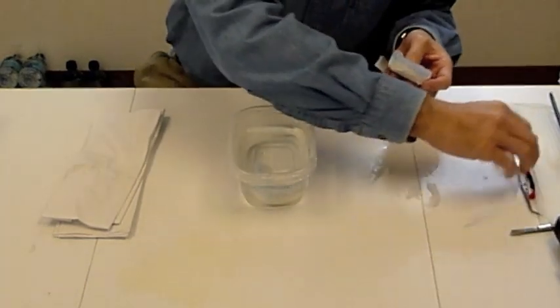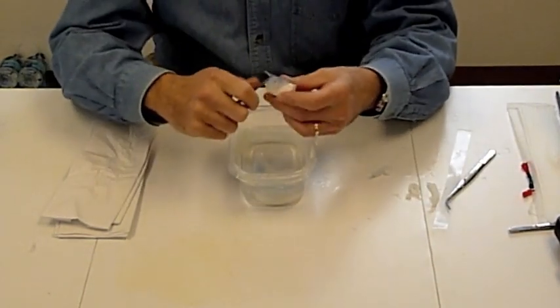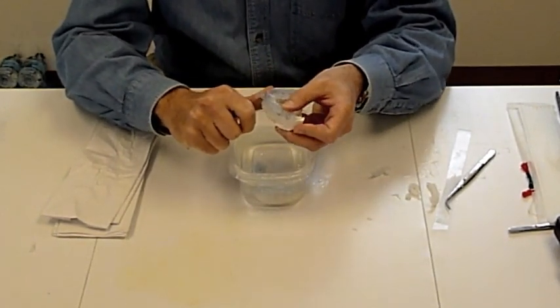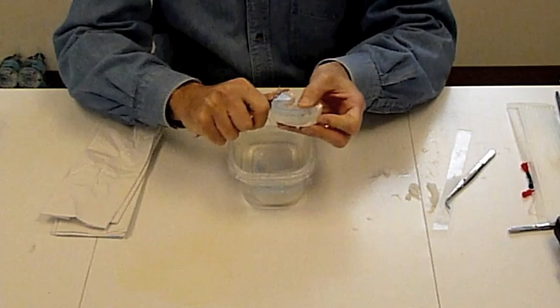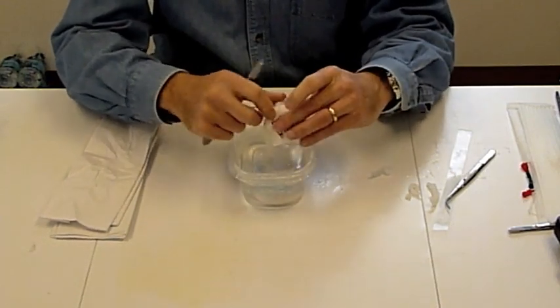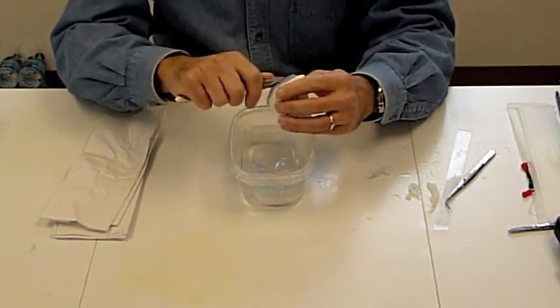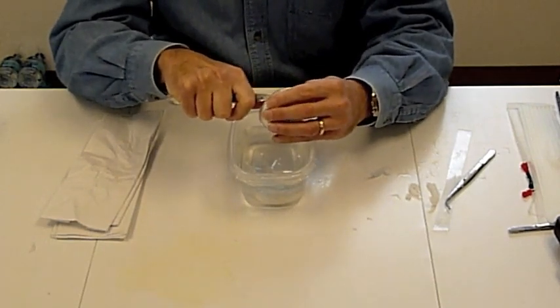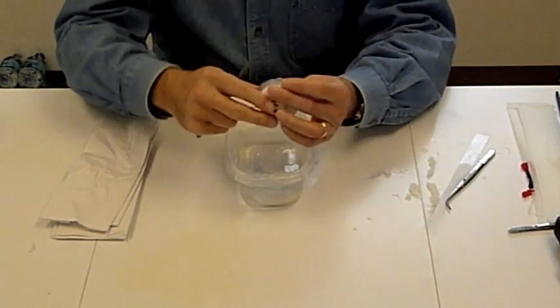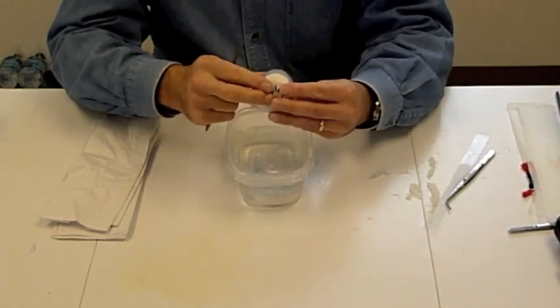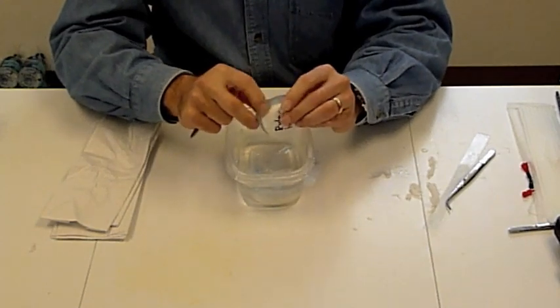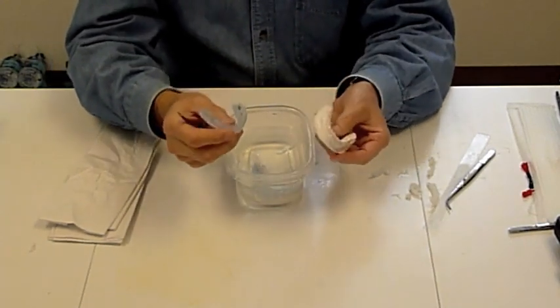I find this is an easy time to finish with the sharp knife. Makes it very simple to go ahead and trim this. Once it's trimmed on the model, there's less chance for distortion or tearing the material. Then loosen the tray. I often find that just pushing down on the brackets is very good for getting it to loosen up.